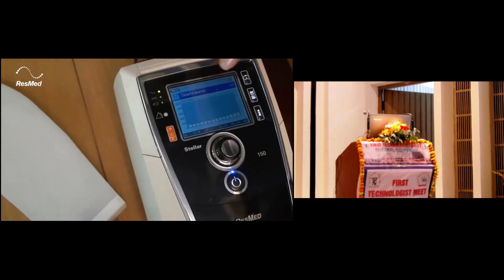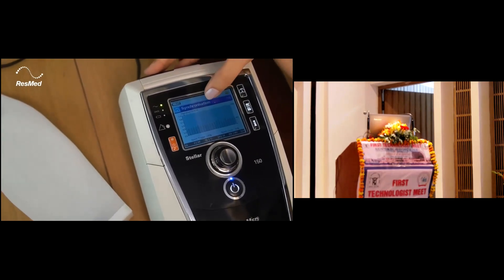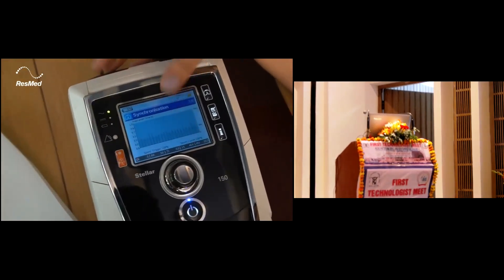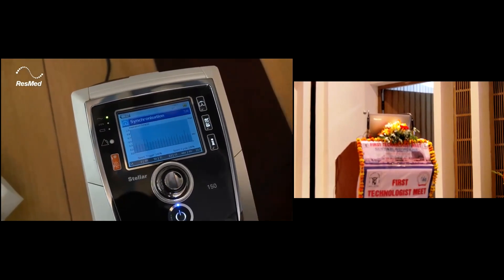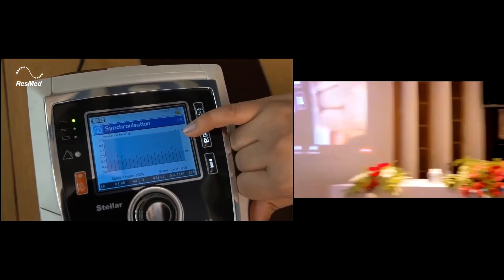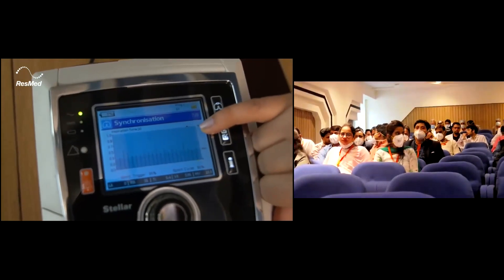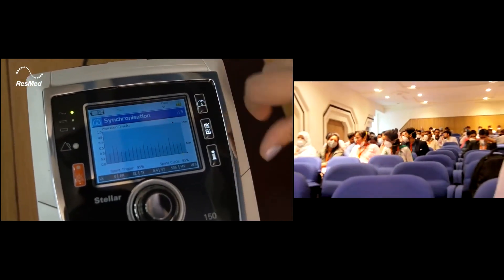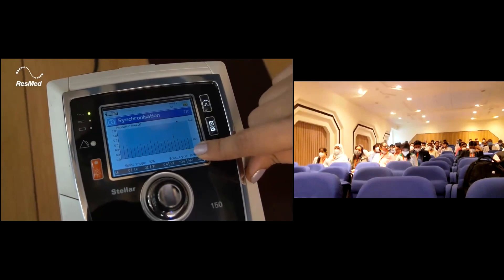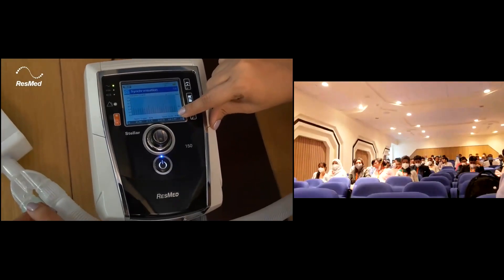The leak in the next page, the tidal volume over the last 15 breaths and the synchronization. Here you can see wherever there is spontaneous respiration, I do not allow any leak at this point in time. The red color triangle basically indicates that the breath was given by the device.